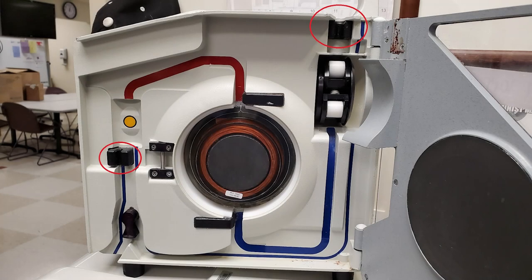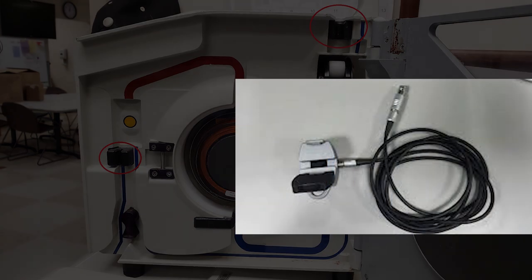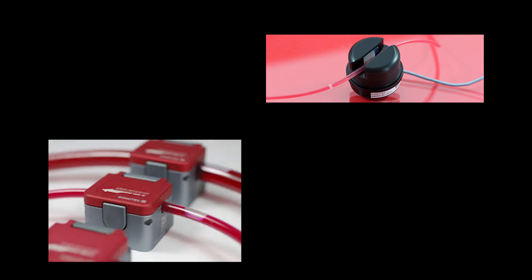Ultrasonic sensors are often discrete and integrated into a medical device or encased within a metal clamp. Their largest advantage is the ability to function non-invasive to the liquid that's being monitored. This maintains sterility. And having no mechanical moving parts, they offer a long, reliable service life.